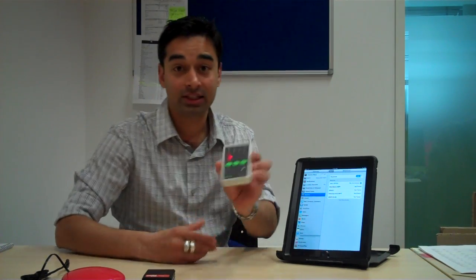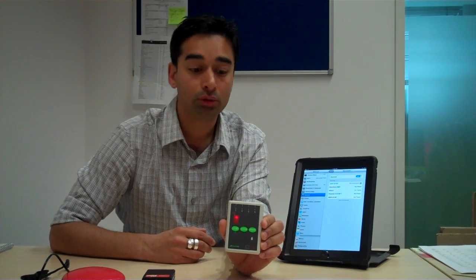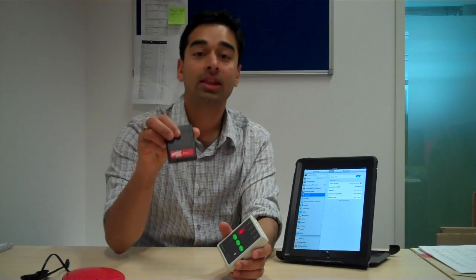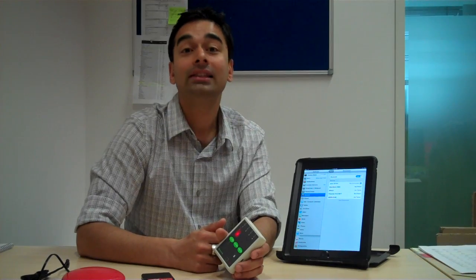The Applicator, which is this particular unit, is a switch interface. It allows you to plug in one, two, three, or even four switches and then connect to an iPad. It is similar to the TherapyBox switch box, or in America, popularly known as the RJ Cooper switch interface. While it performs similar functionalities as these switch interfaces, it is also able to control music.